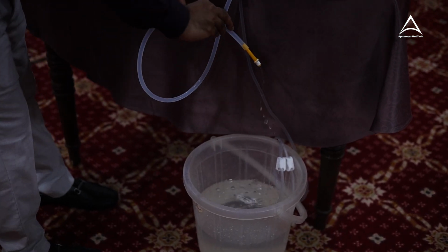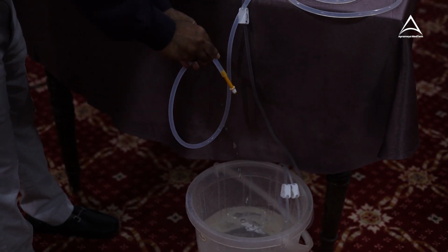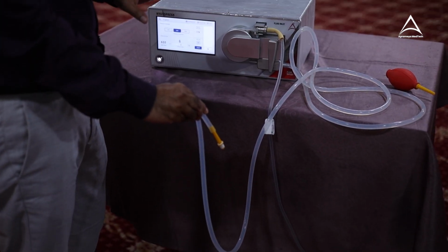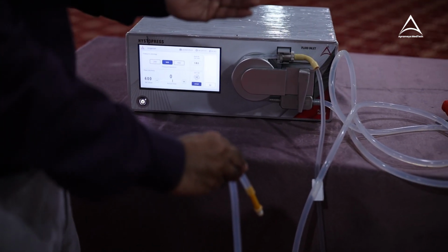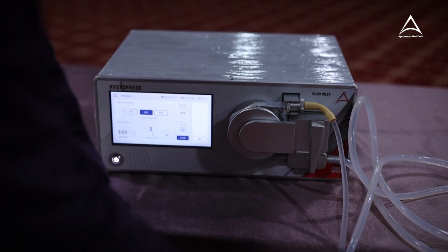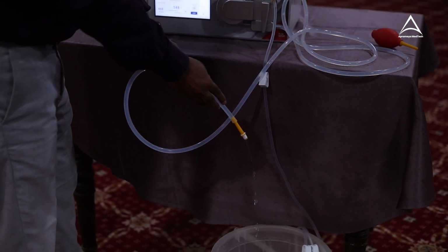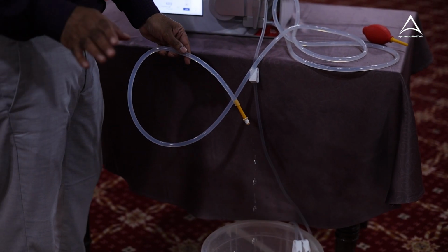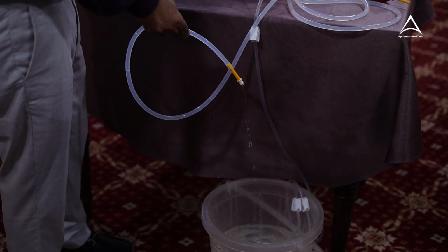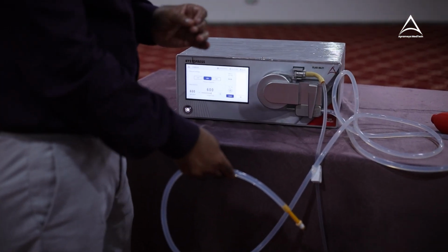So now it is continuously giving me laparoscopic irrigation. Now my irrigation is over. Suppose I am closing the cannula. The machine is stopped. Now my work is done. Again I am doing some surgery. Again I want to give a flush inside. Again I will open the luer lock. Machine will start. So if you see, there is no involvement of any foot switch. It is absolutely giving you a controlled irrigation whenever you want it, on your demand.